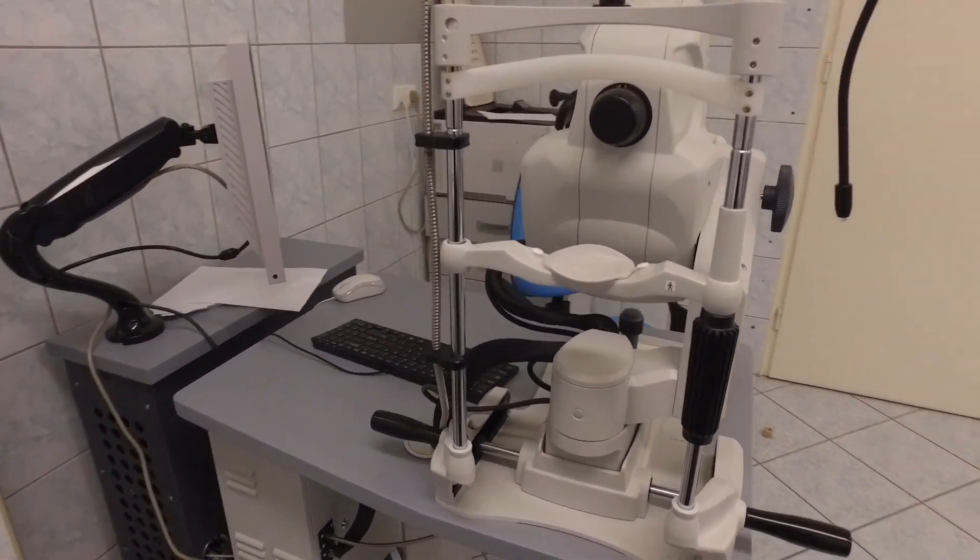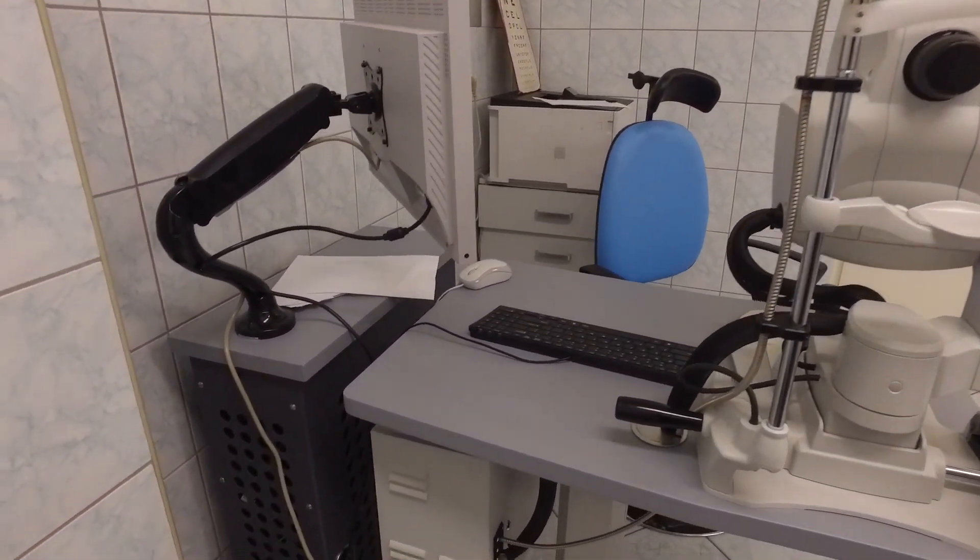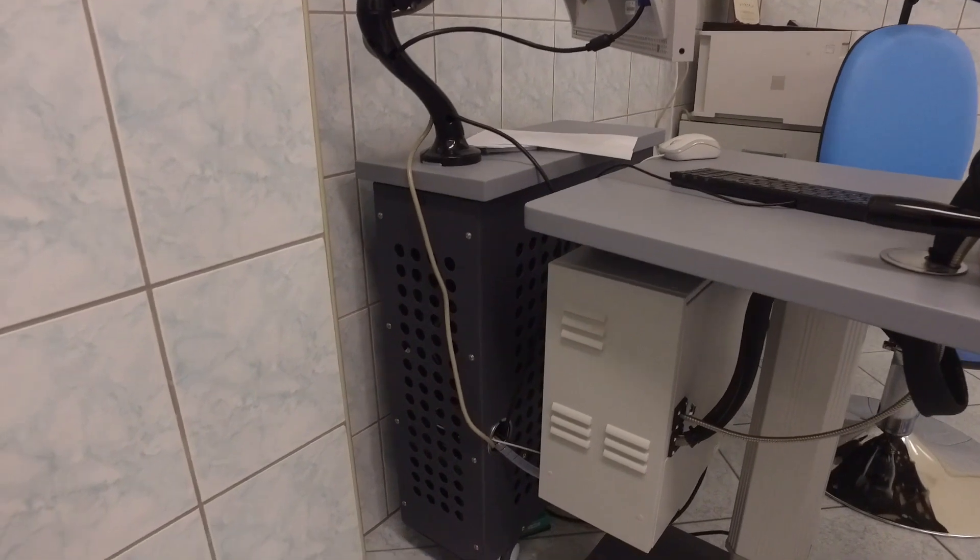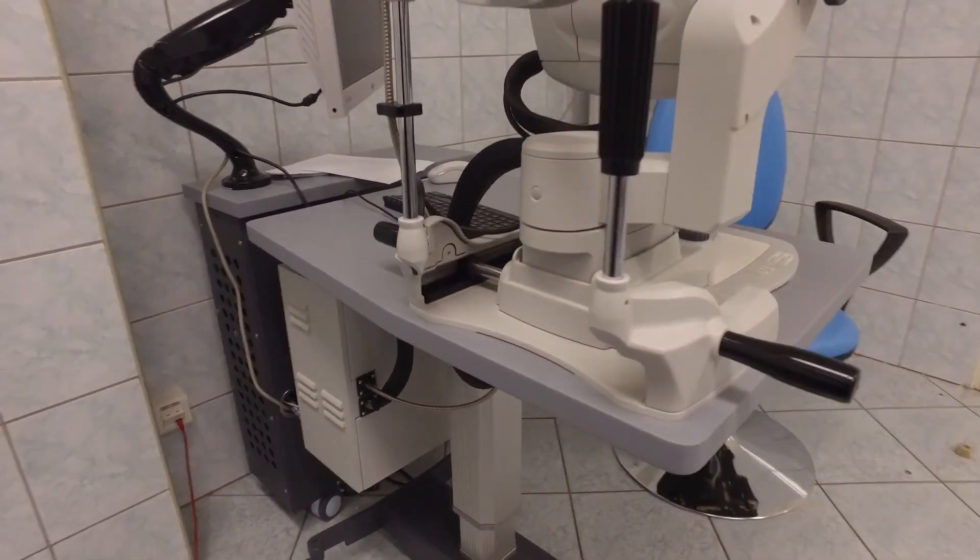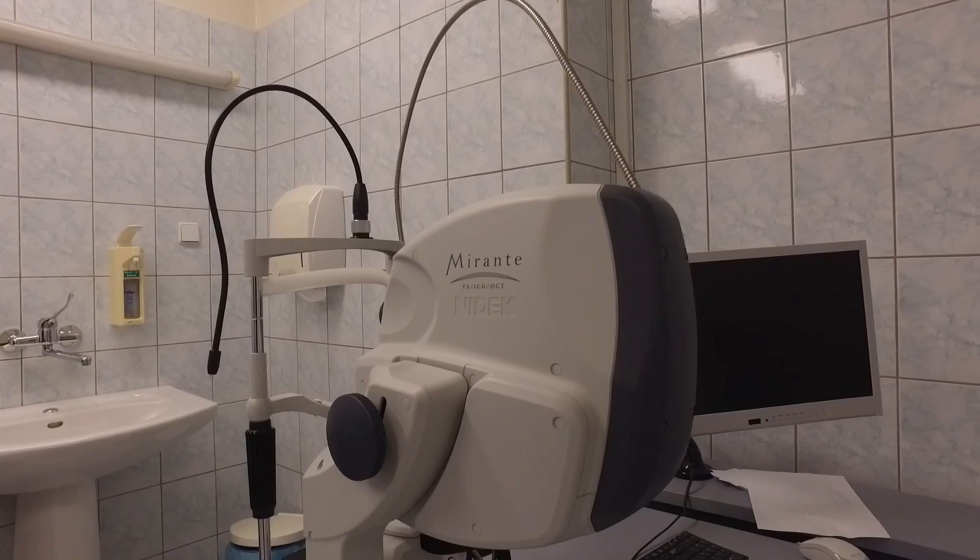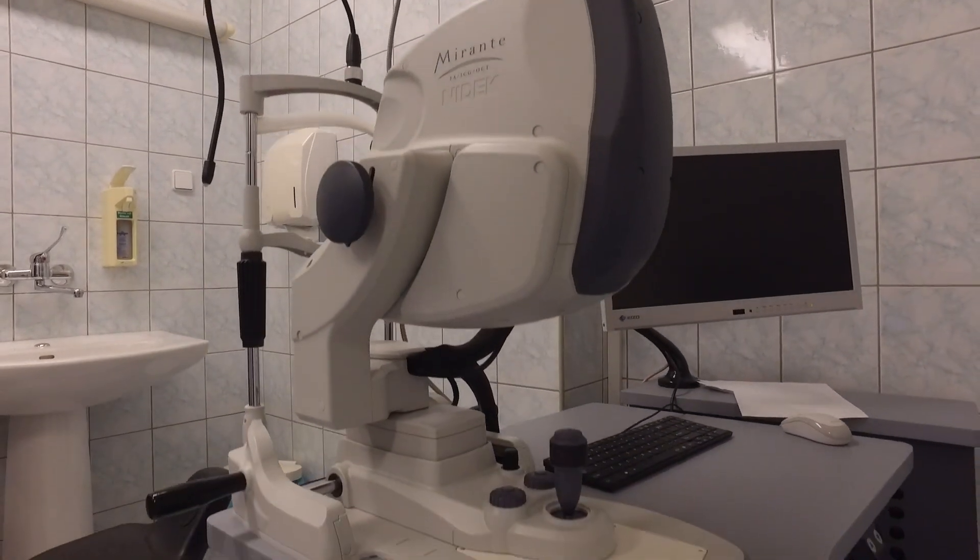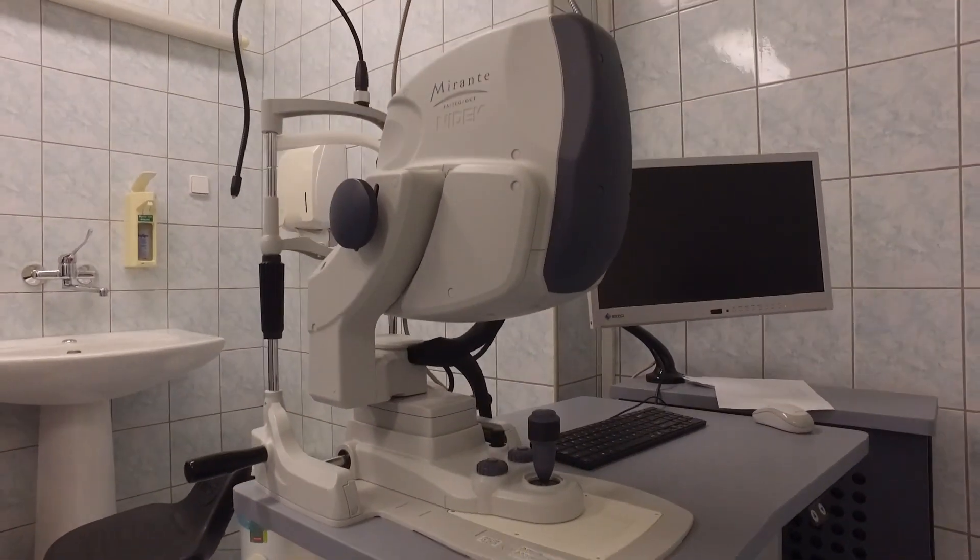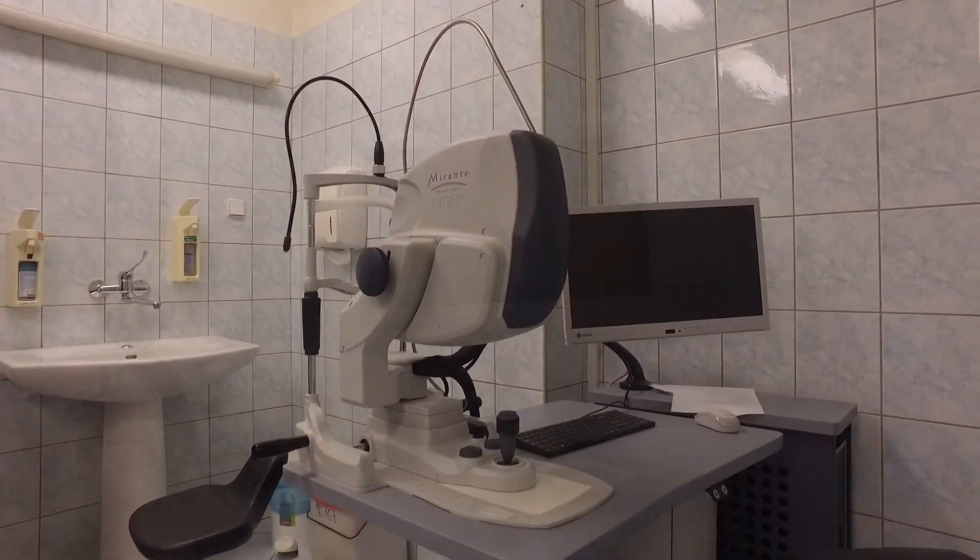Let's start from the outside. The device is relatively large and has a sleek modern design. Patient handles are horizontal which is great because it helps patients to sit down without touching the device. This is really cool. I love it.